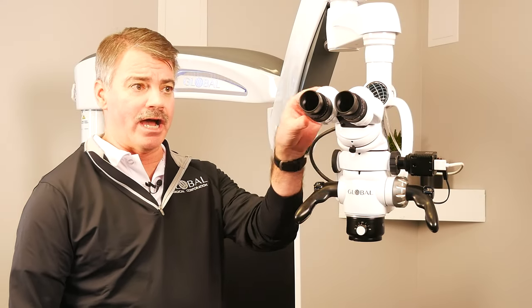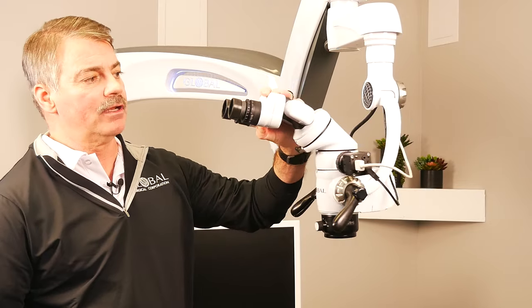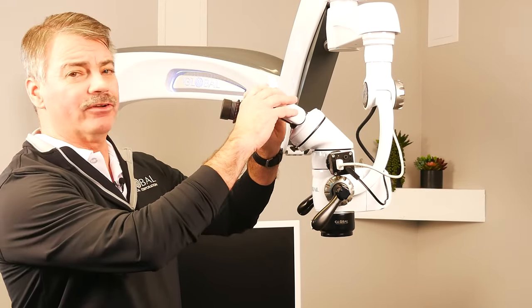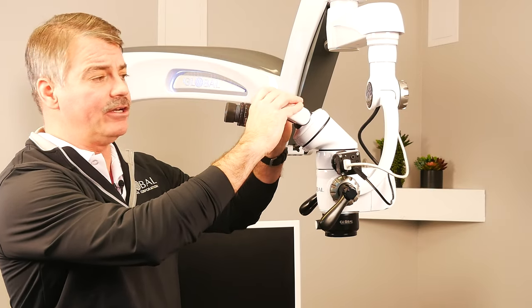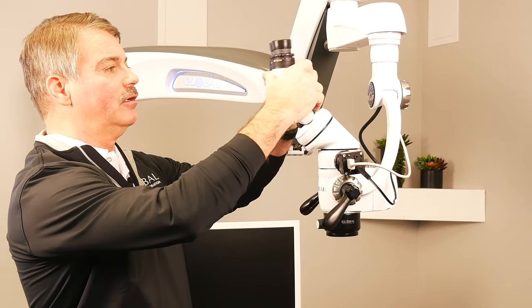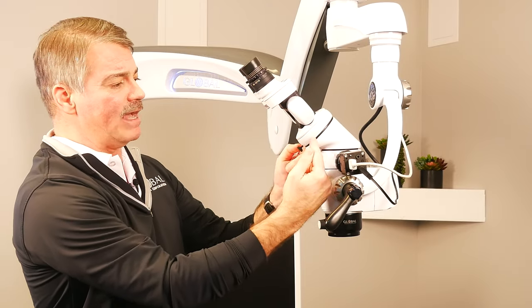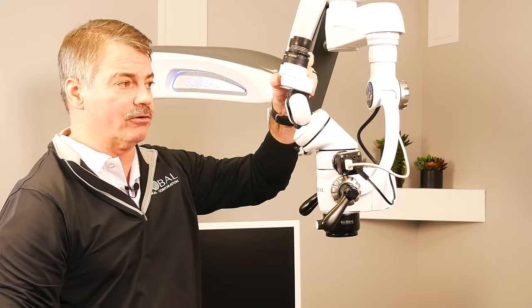And now we move on to the business end of the microscope: the binoculars. The Global A-Series binoculars are called inclinable binoculars. The industry standard for inclining binocular movement is about 150 to 180 degrees, but the Global A-Series actually moves 220 degrees of articulation — quite the engineering feat to keep all the prisms and glass aligned throughout that entire 220-degree rotation.